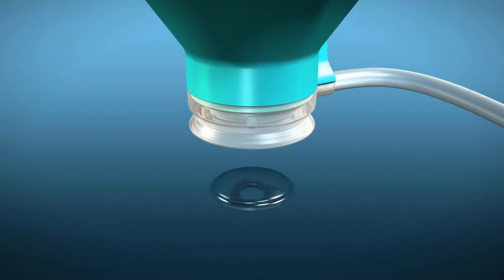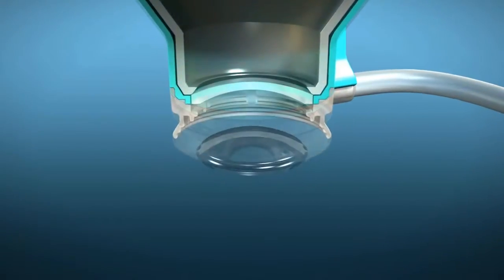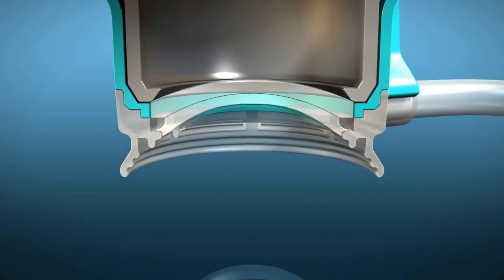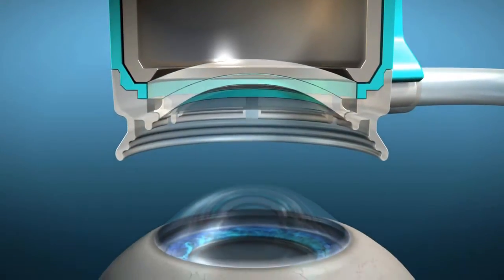This proprietary soft contact lens insert allows the natural curvature of the cornea to conform to a soft contact lens insert, delivering a gentle, secure fit with minimal corneal distortion.